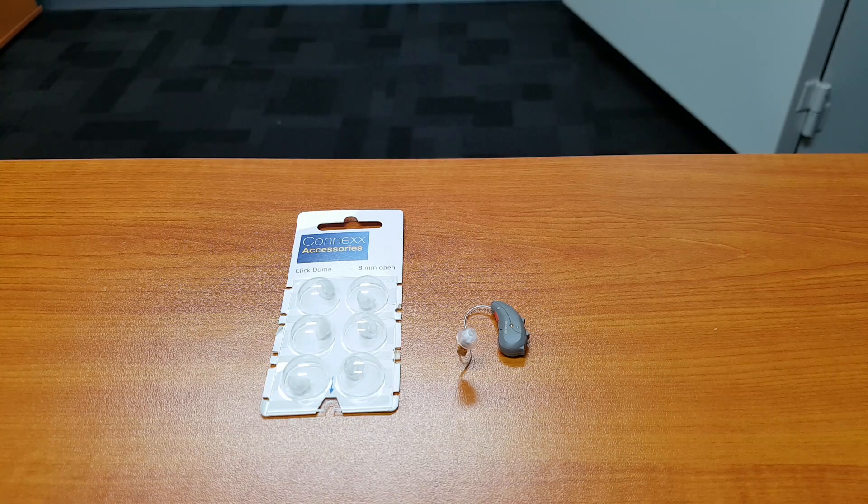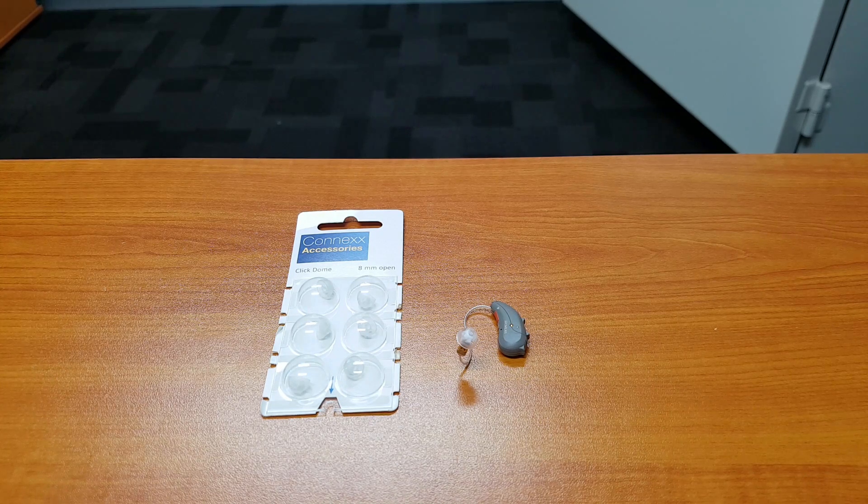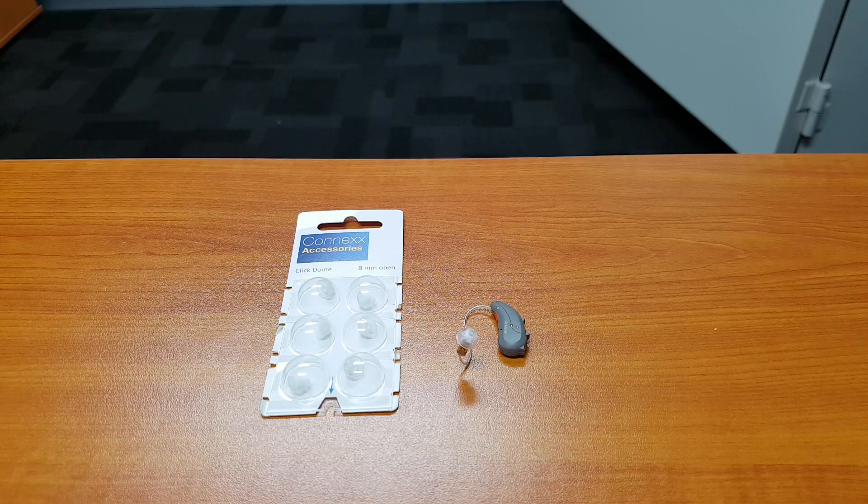Okay, so today I'm going to show you how to replace a click dome on a Siemens Pure hearing aid.